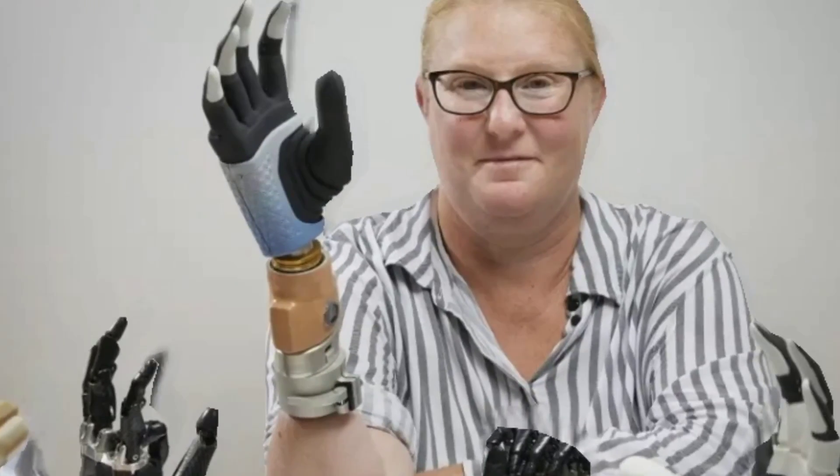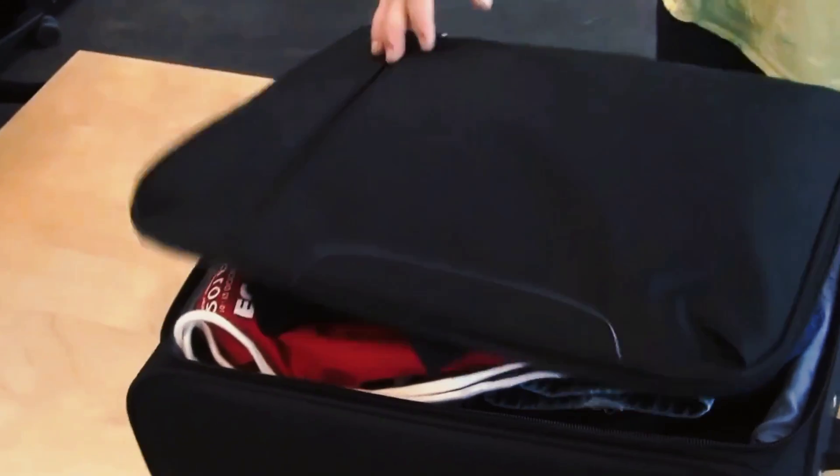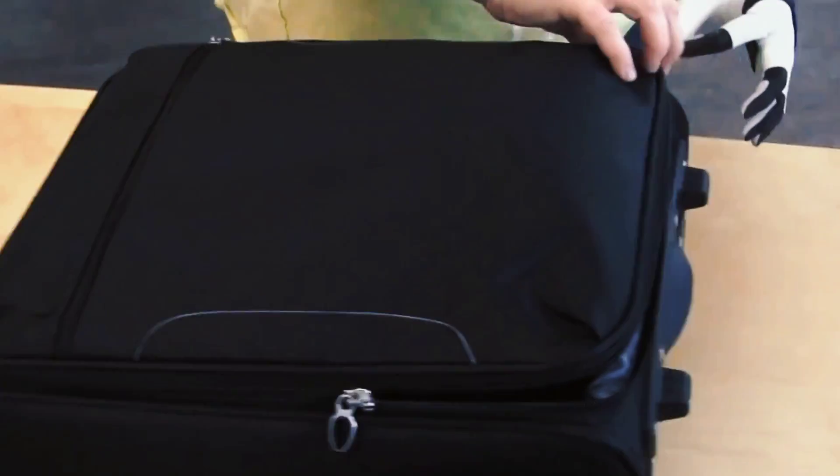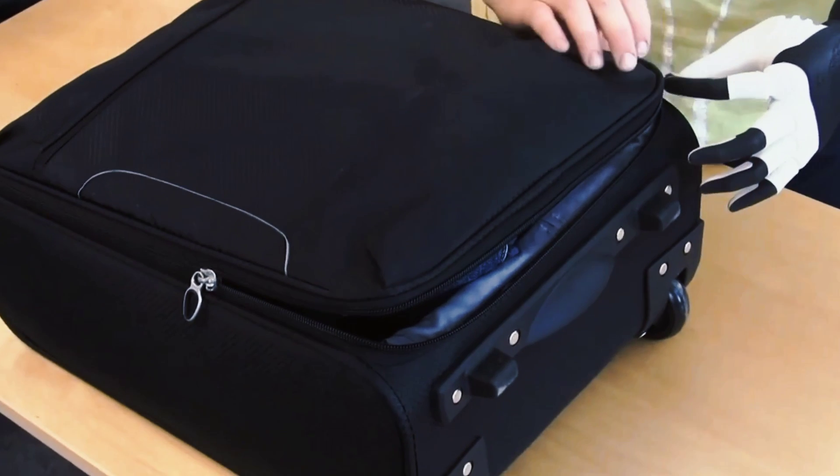It's about Karen, a 50-year-old woman from Sweden who has become the first human to receive a robotic limb fused with both her nervous and skeletal systems. She is being dubbed the real bionic woman and her story is truly inspiring.